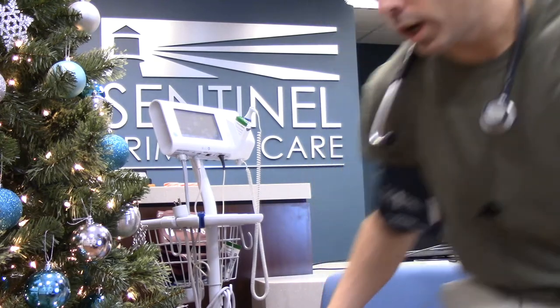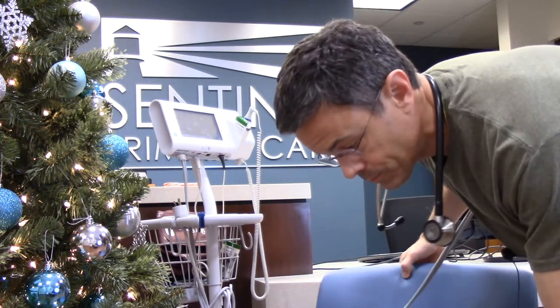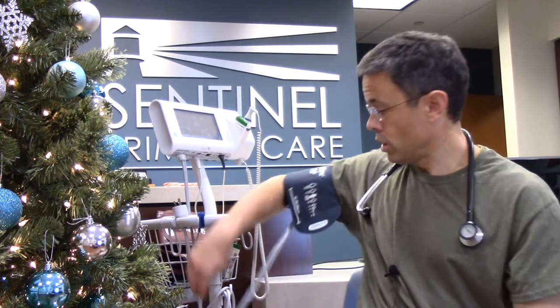Number three: positioning matters. What you want is a chair with back support, rather than laying down or leaning back into a squishy sofa. Sit, lean back into the back support, feet on the floor, and your arm should rest comfortably at tabletop height — or at about armrest height if your chair has an armrest.